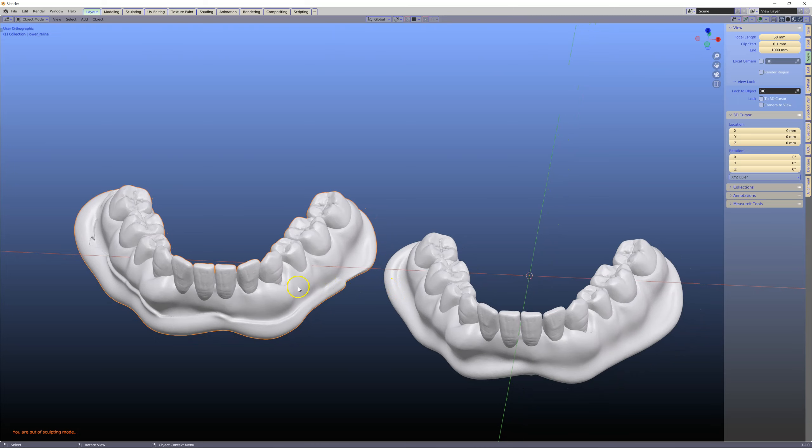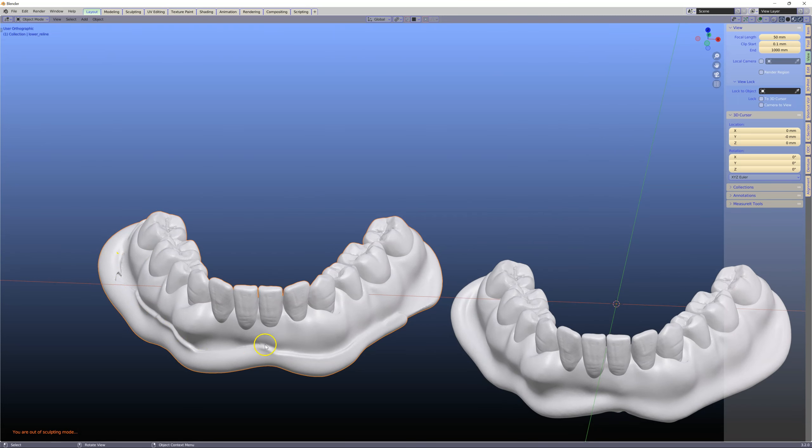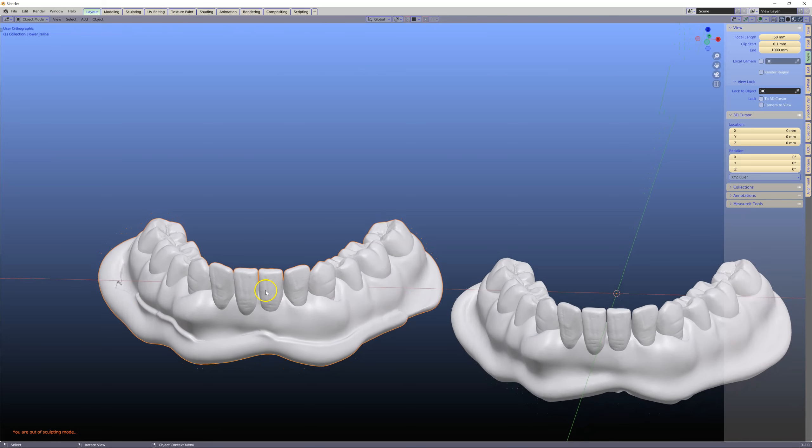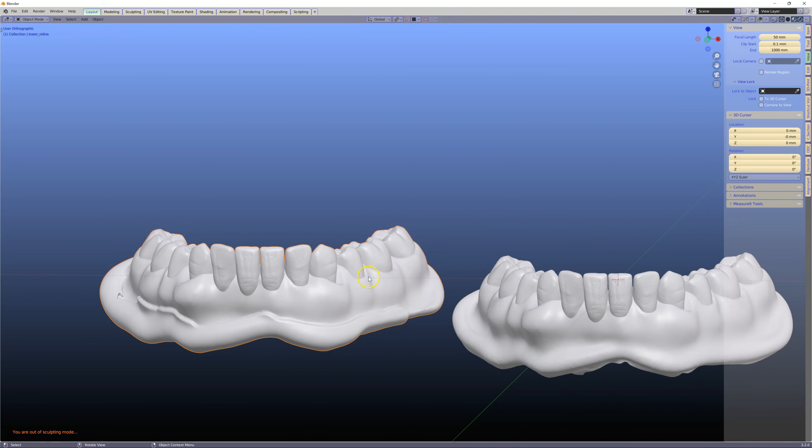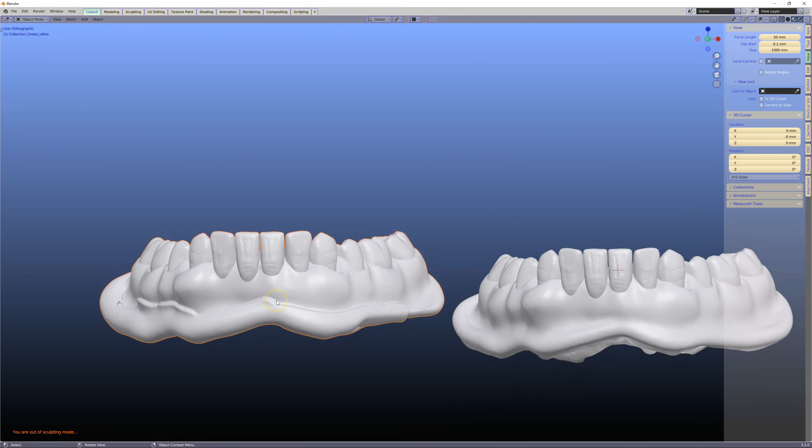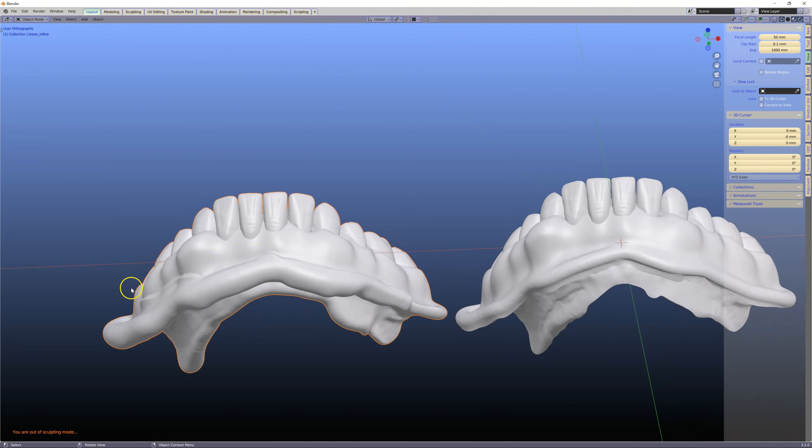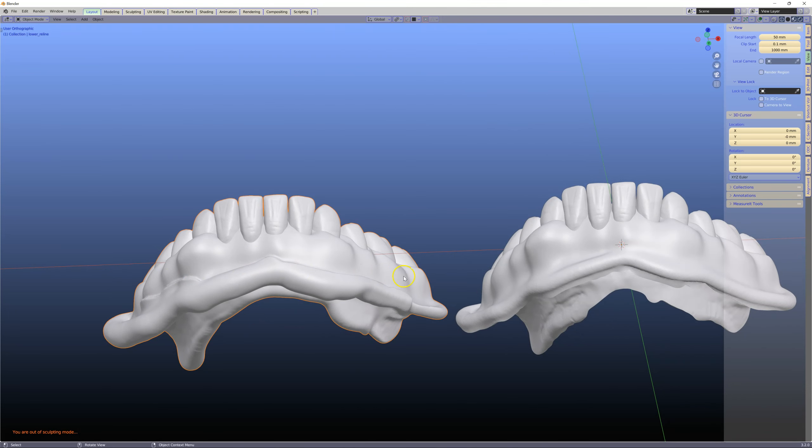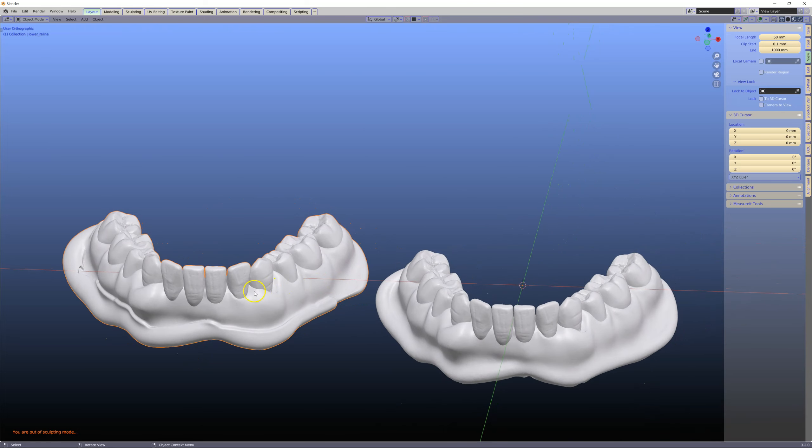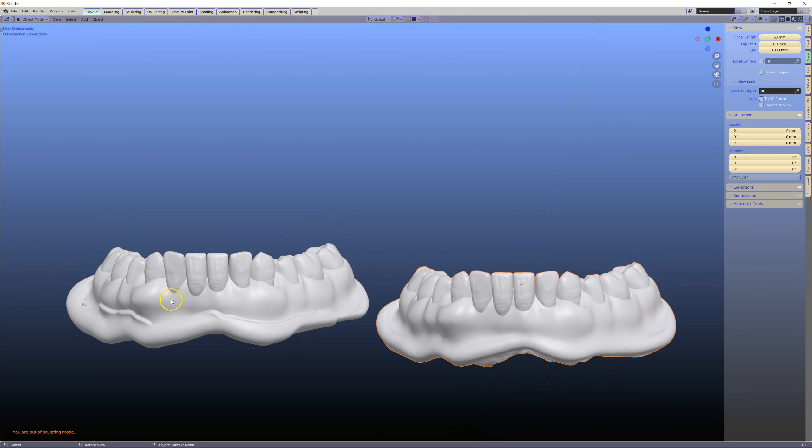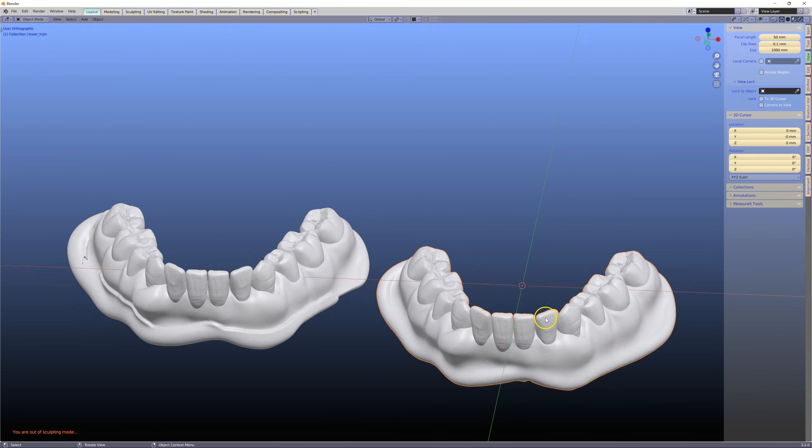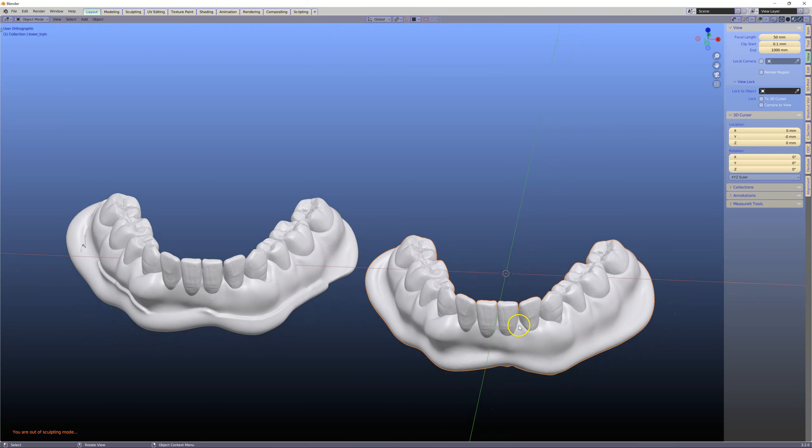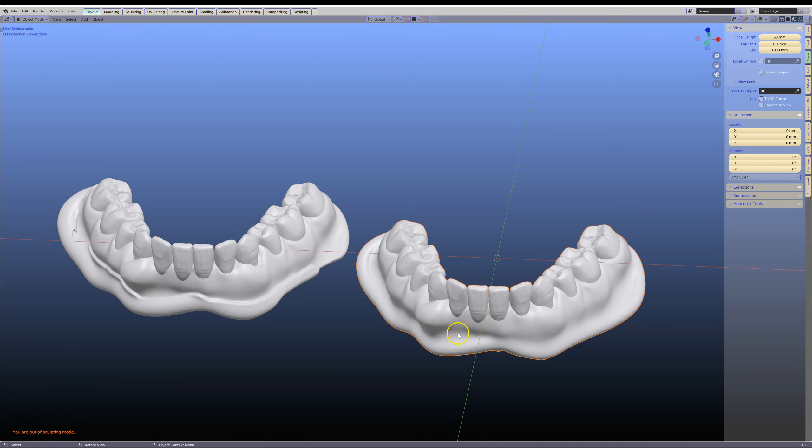This would be a scan of the denture. The scan won't be as accurate or as nice, but what's of interest is the reline that we have, because this is different. The idea is to merge one denture with the other. This can also be used where the patient has an old denture that is relined in the mouth, and then we put new teeth on top of that. Let's see how this works.